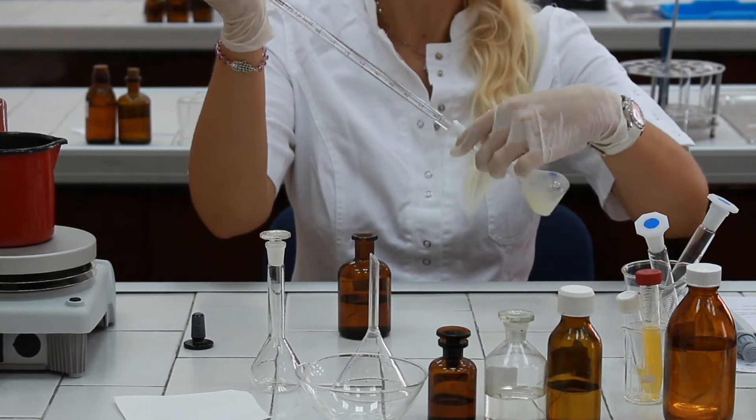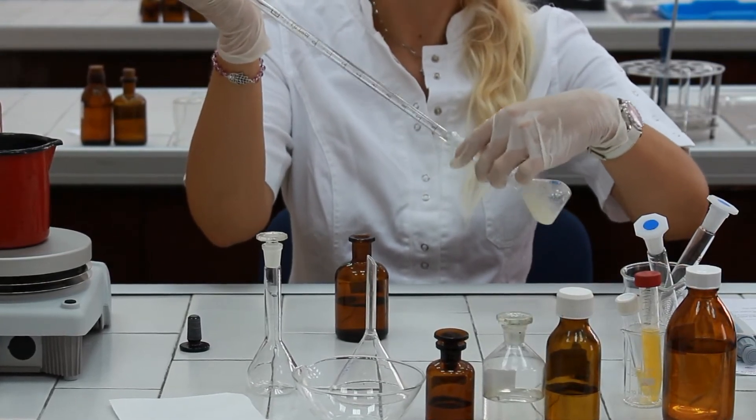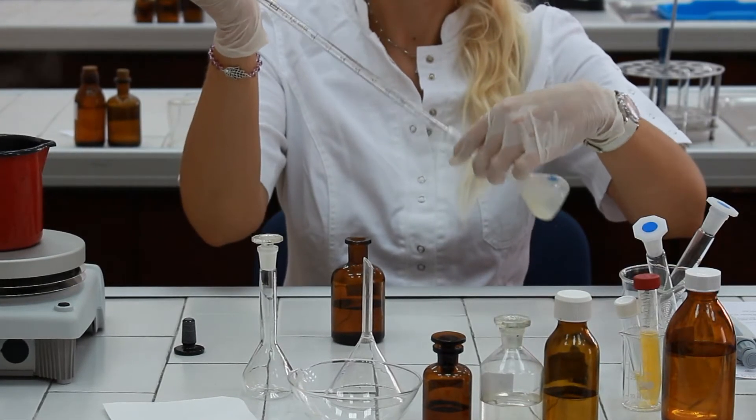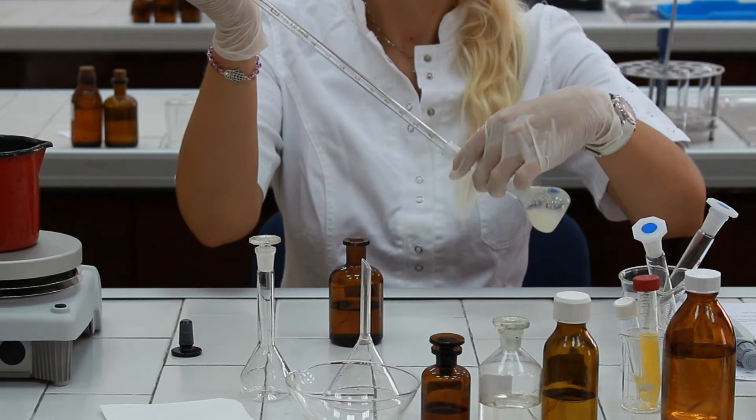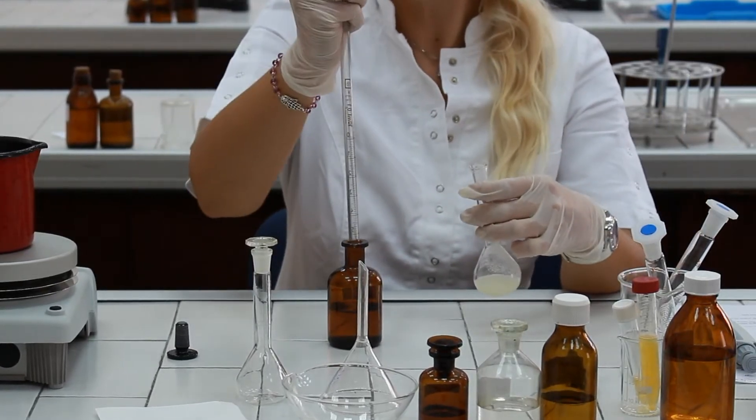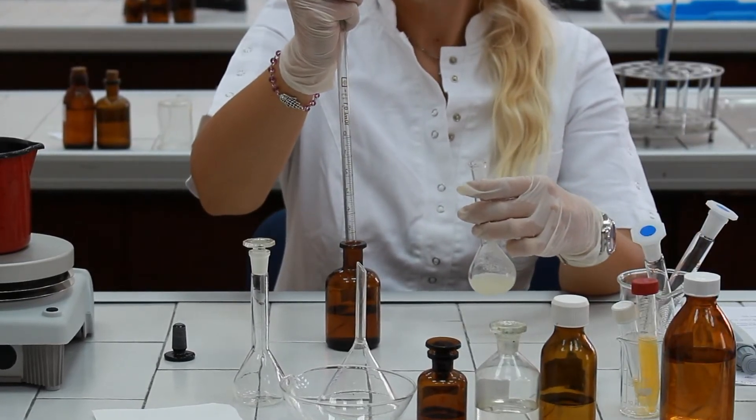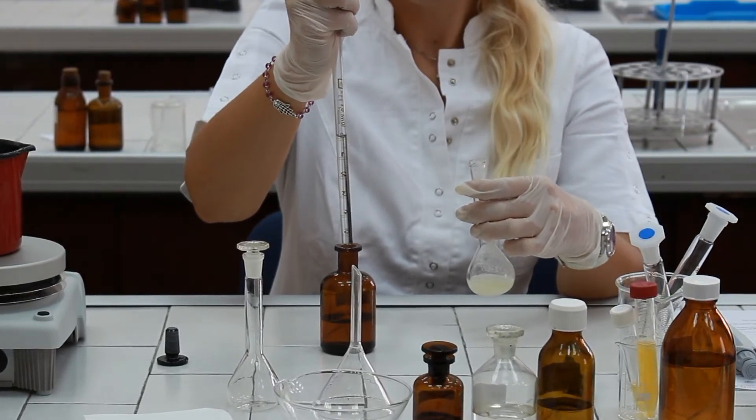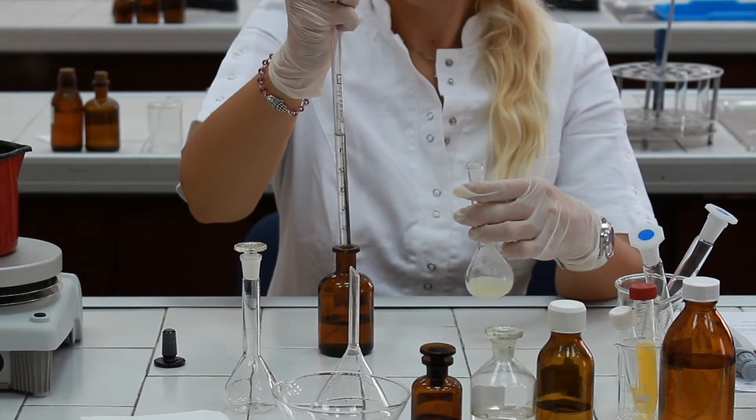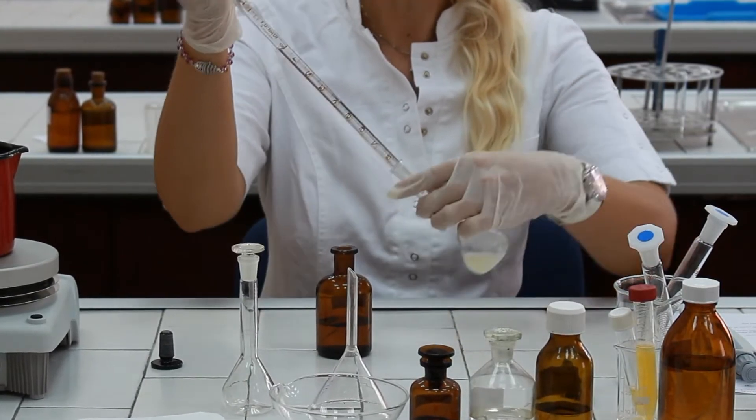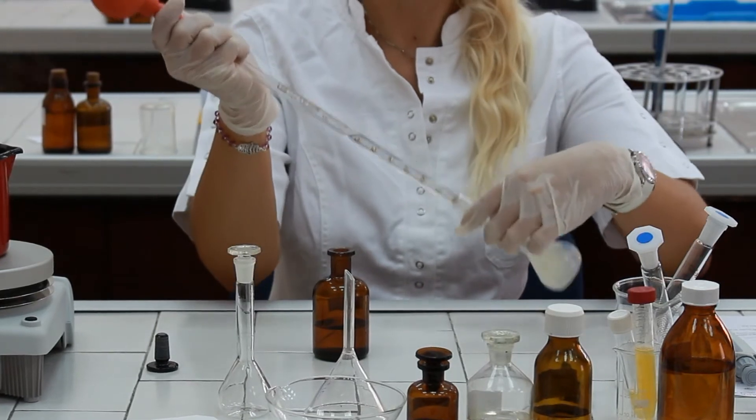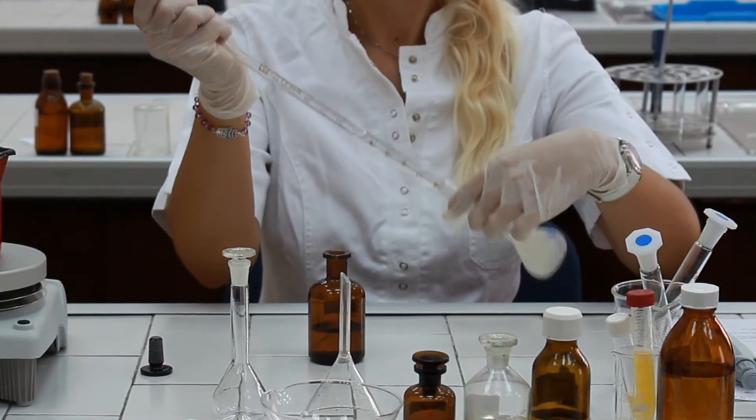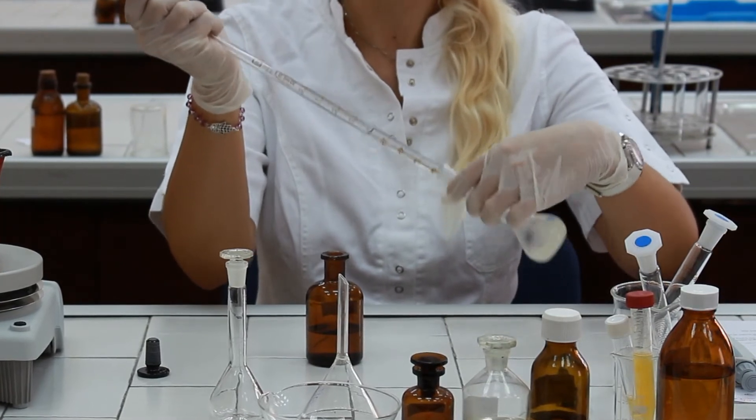Notice the precipitation of blood plasma proteins. Another 10 milliliters. Another 10 milliliters. The same procedure, constantly shaking the volumetric flask and actually performing the extraction procedure.